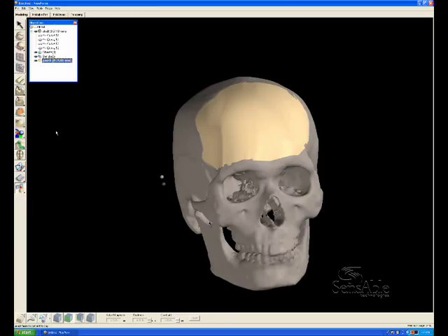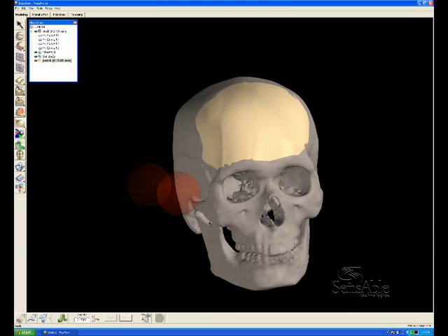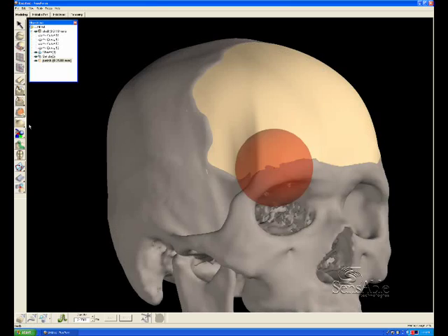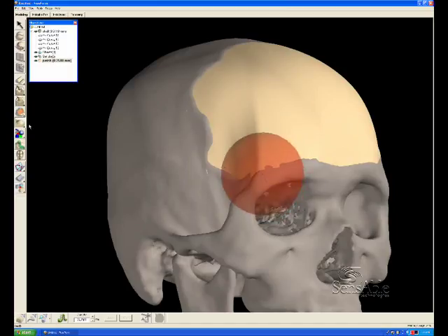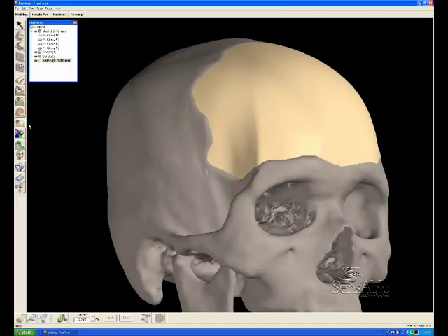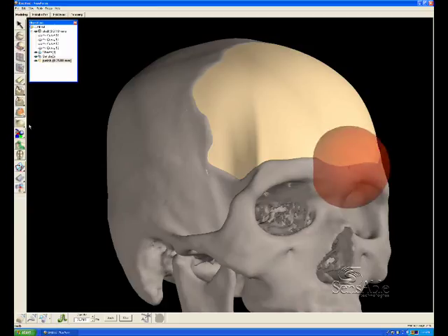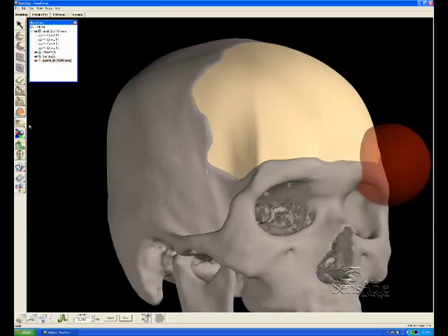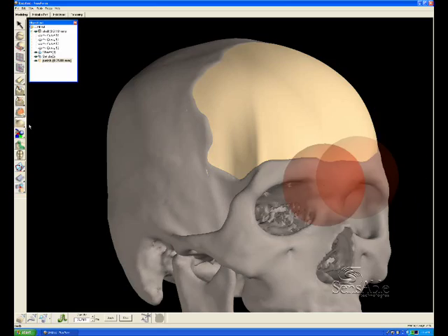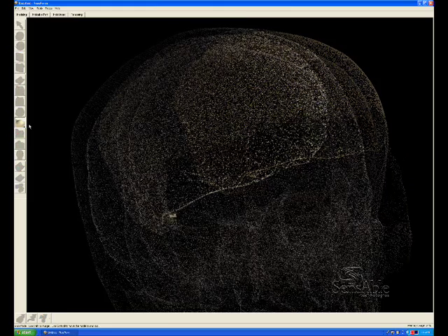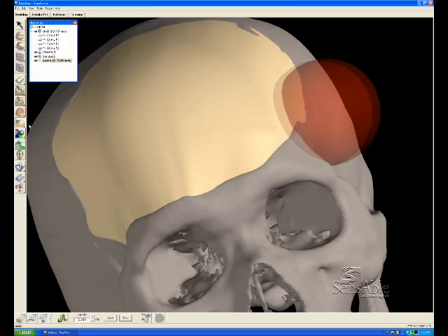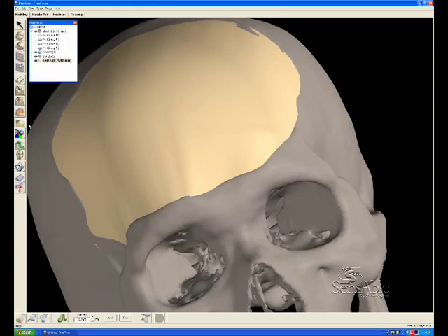We'll hide those curves that were the boundary for the surface, and that surface is no longer evident in our object list. Right now we just have a voxel volume at the moment, a virtual clay volume. So I'm going around the border and tugging in the clay plug so that it meets up with the beginning of the defect area.